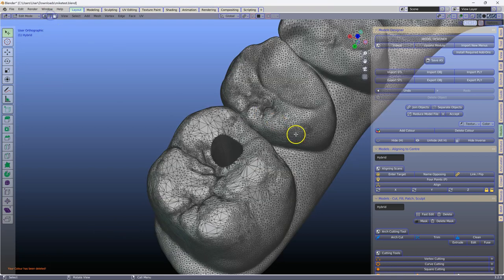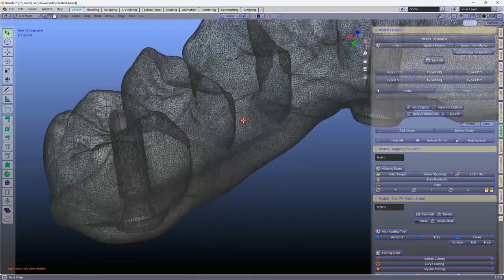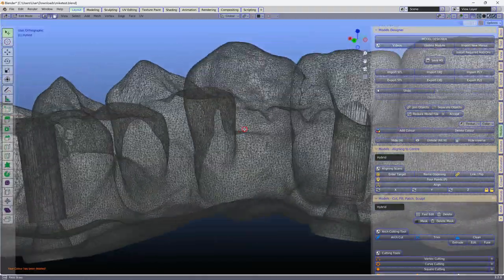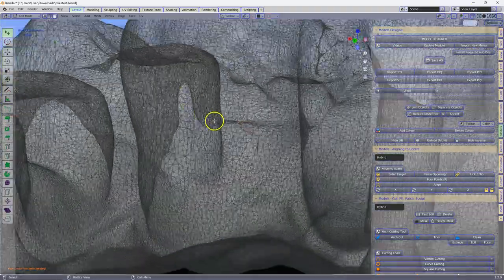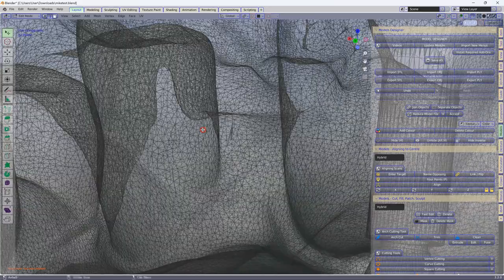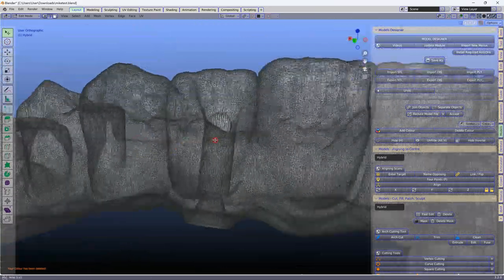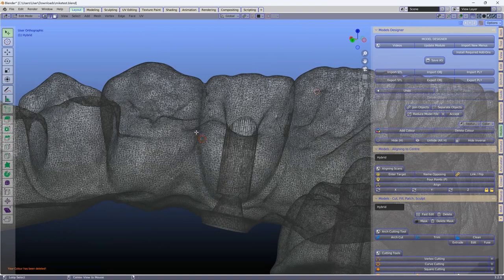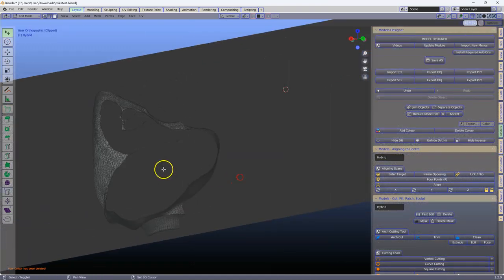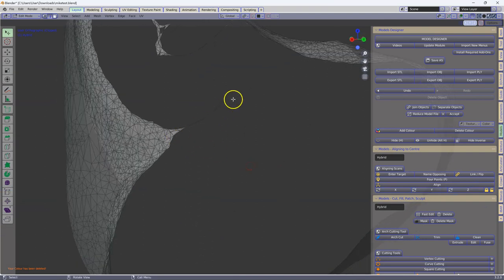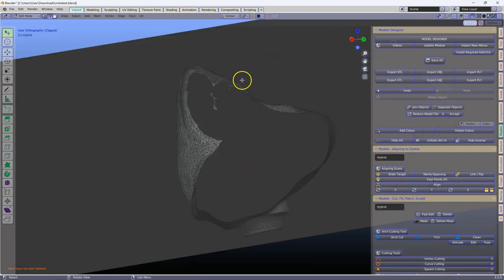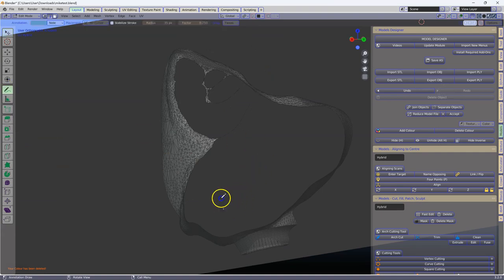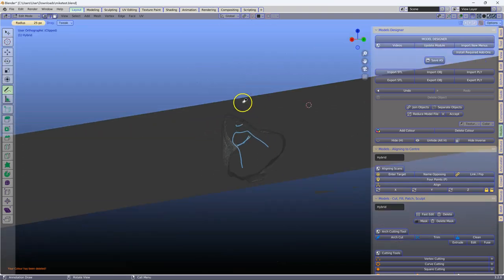The next thing I want to point to is the structure between these teeth. Now we want to create an i-bar, and we have a few flaws in here. In Edit Mode, we can see we've got a strand running across from that side to that side, and if we want to make a nice i-bar that comes through like that, these strands will prohibit us to cut the i-bar. So these are things that we need to look out for.